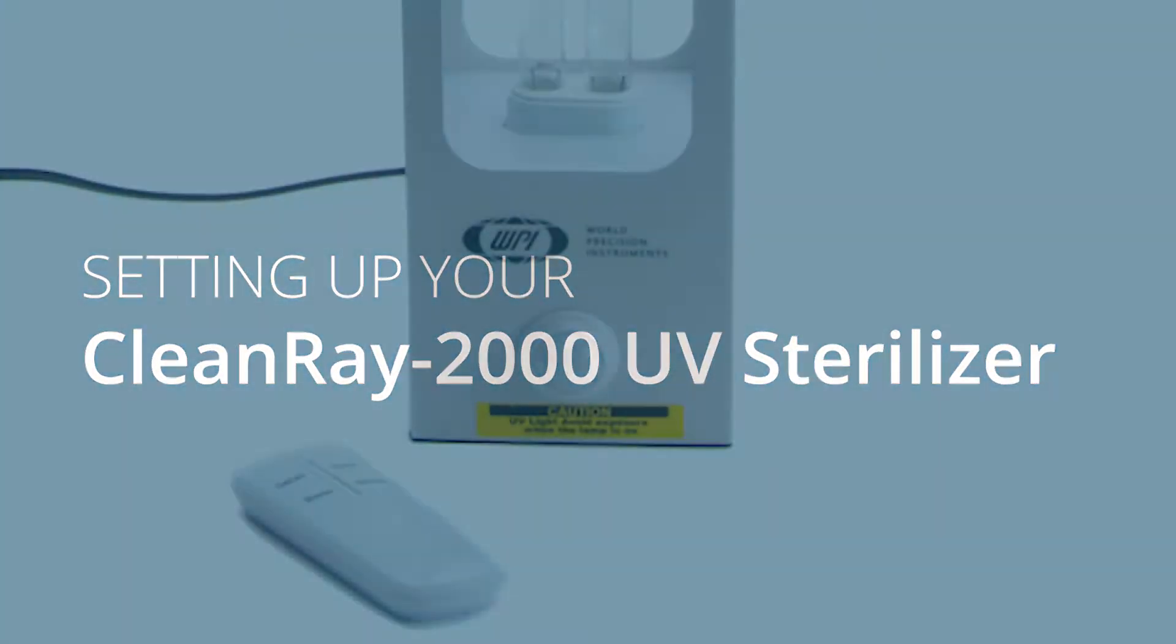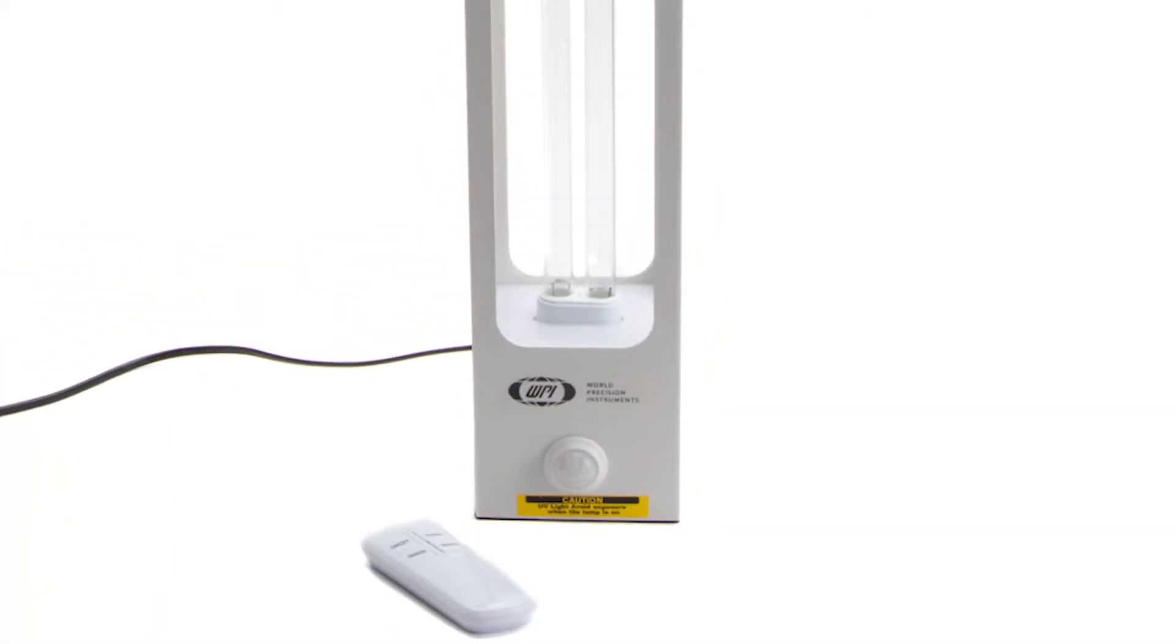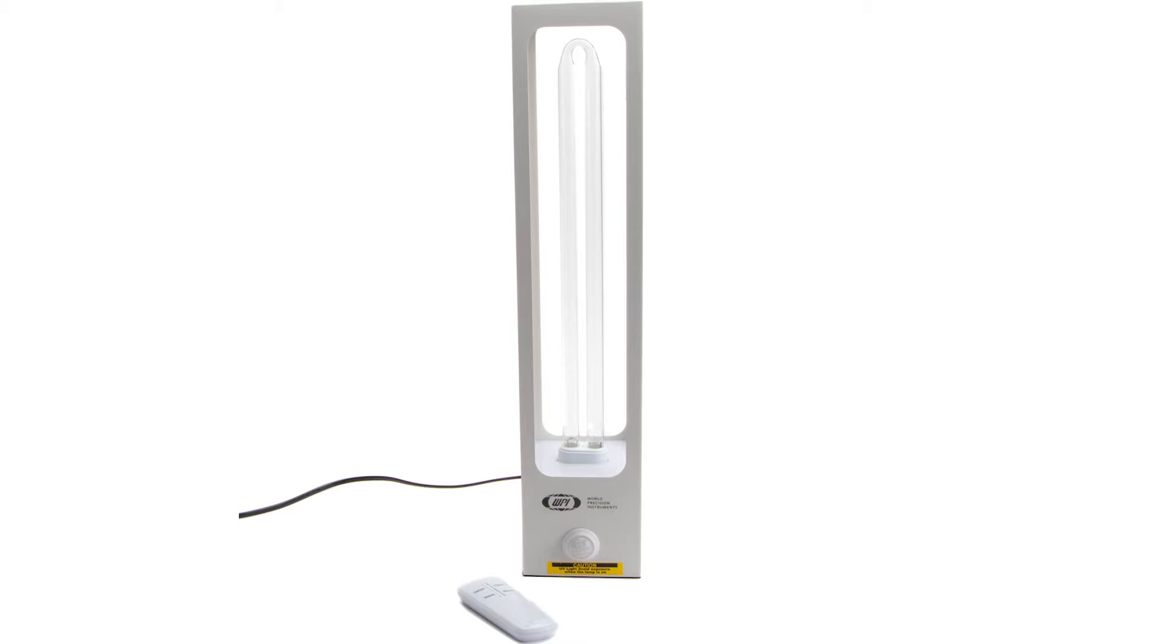The CleanRay 2000 UV Sterilizer is easy to set up. Before we begin, though, here are a few cautions.